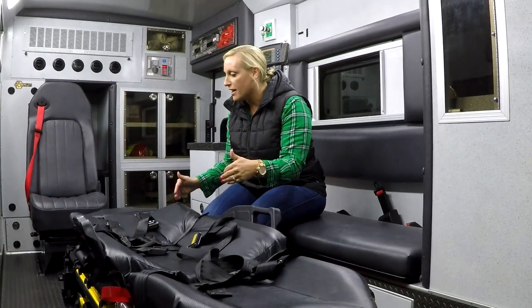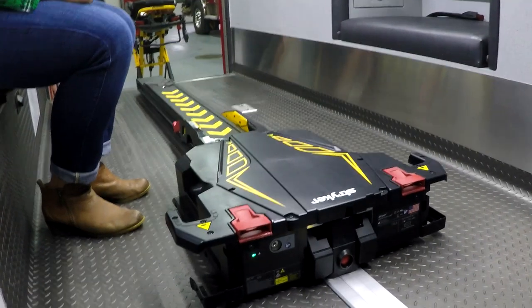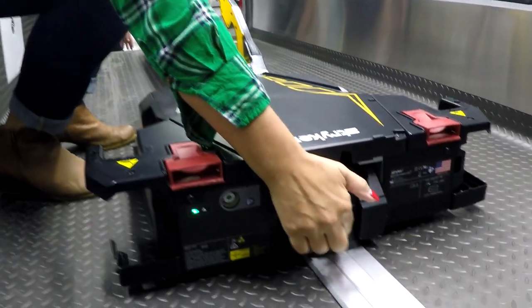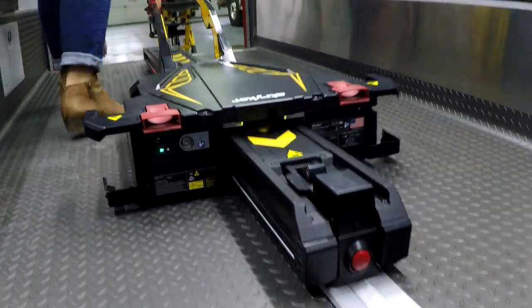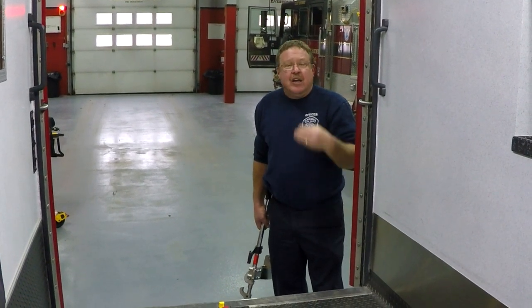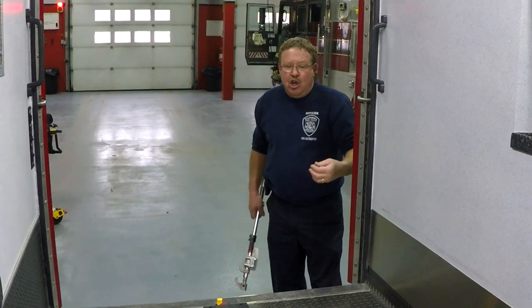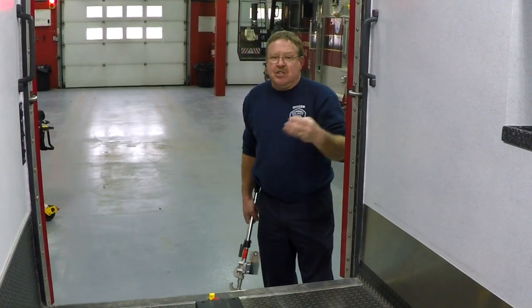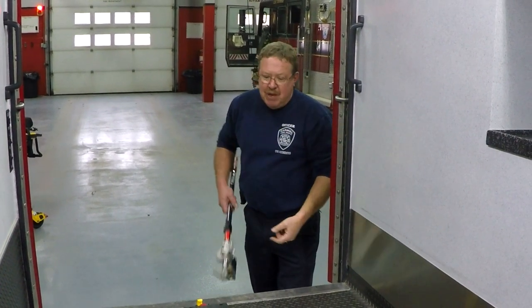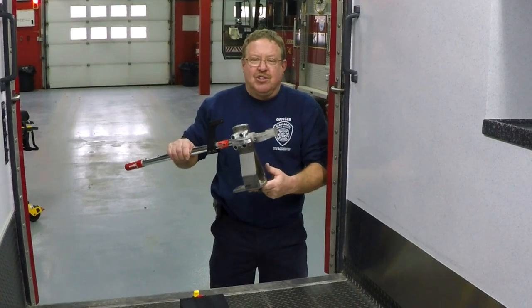Because we manually loaded this cot, you'll need to manually unload it the same way you're used to with your antler and rail. To manually release the trolley once the cot is out, lift up on the arms and press the large red button, and it will start to slide out. If you're loading a cot other than Ambulance 46's cot — a Westfield cot, surrounding department cot, or one from the EMS cart — use this system like the old-style system. In the left-hand side compartment, we carry the lock rail system. Drop it into the foot plate, slide it in, put the nut in, and tighten it down hand tight.